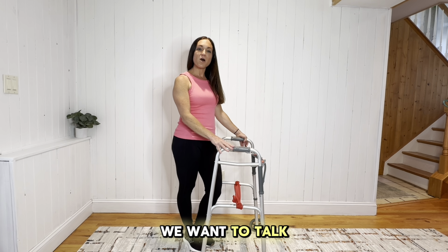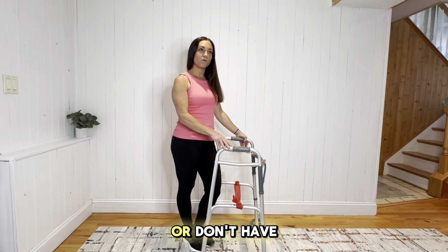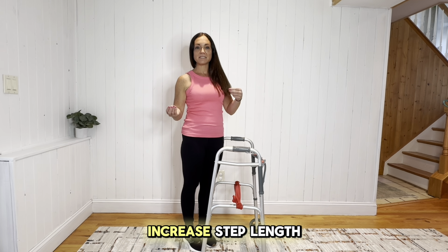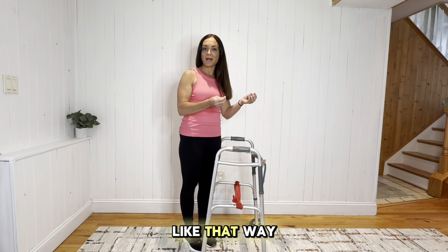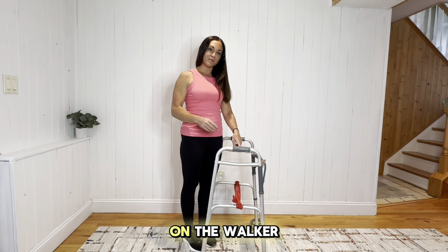So today we want to talk about your patients that shuffle when they walk or don't have an increased step length. Instead of always giving the verbal cue, increase step length, increase step length, and we also know we could put feet down or markers down to increase your step length that way. But another idea is to use an external cue on the walker.